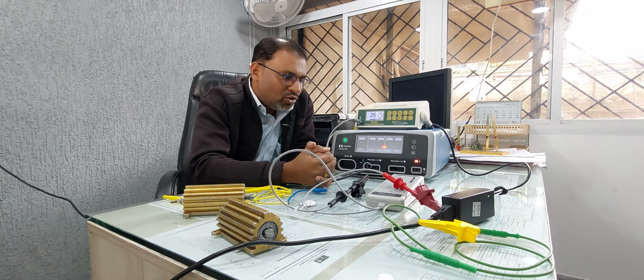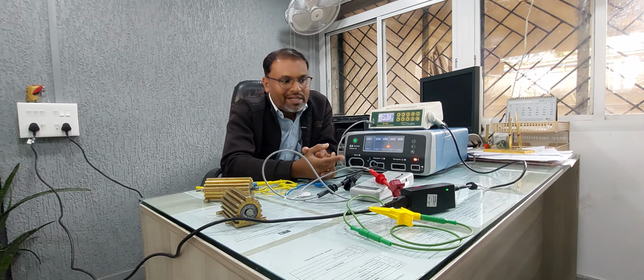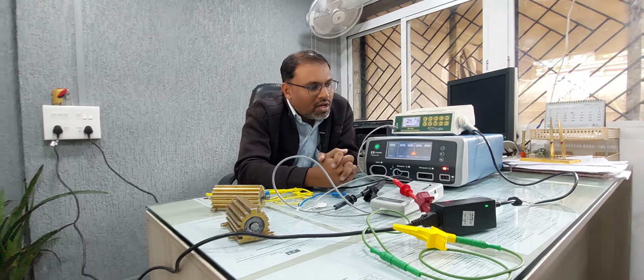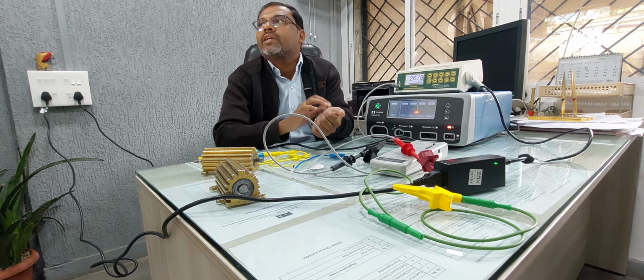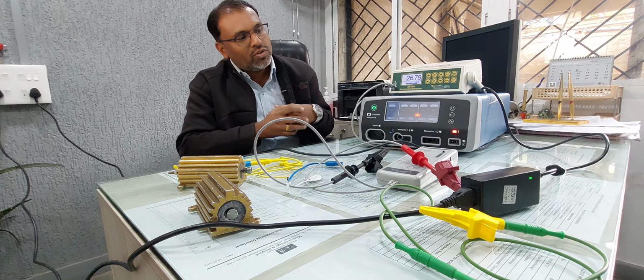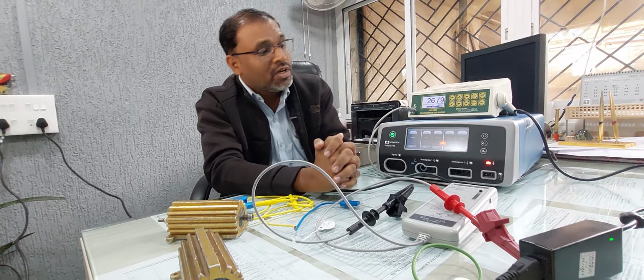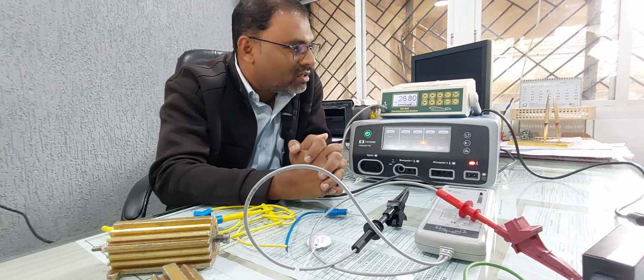Basically it has two types, monopolar and bipolar, depending upon its probe, right? In monopolar, it requires an active electrode as well as a patient plate, that is called a passive electrode. But in bipolar, the same electrode has to work like an active electrode and a passive electrode, right? For that we will definitely conduct a different session. So in this video I will try to show you how to calibrate the cautery.